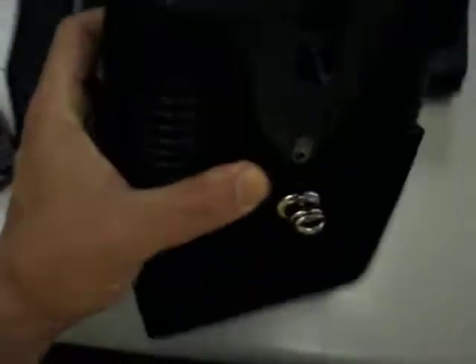It's extremely small and very light. This is the carrying case where you basically just put it right over your shoulder, and this is where it sits. So you can see it's extremely small versus all the other portables. I'm using one hand — my left hand — to lift it up. Very quiet, too.